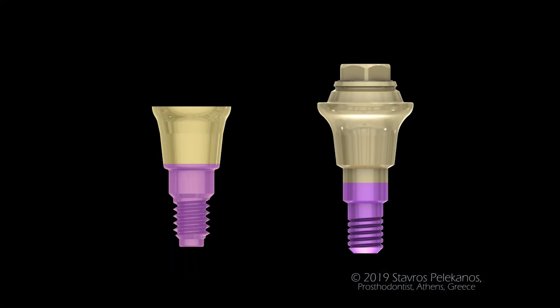I am really happy to present to you the new Connect abutment by MIS. This abutment comes in different transmucosal heights. It's smaller than the traditional multi-unit abutment and has an internal connection instead of an external connection.